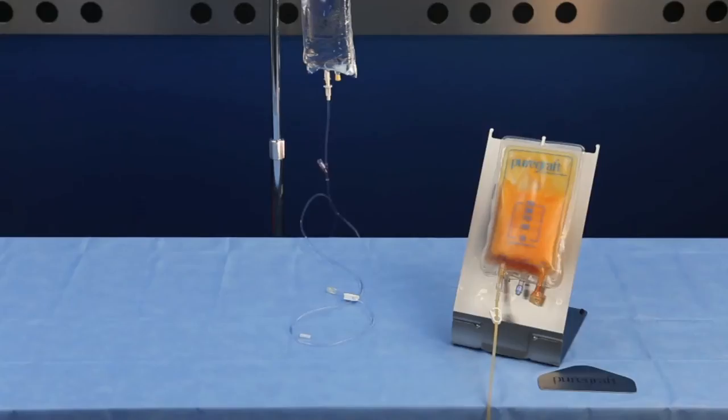If the graft becomes too dry, a small volume of lactated Ringer's may be added to the PureGraft to rehydrate the graft.